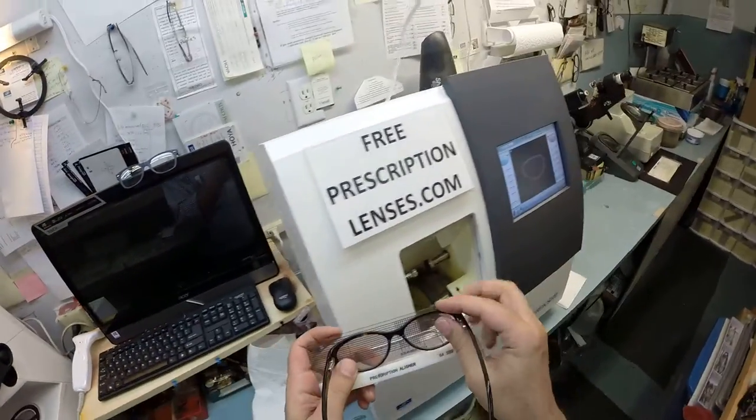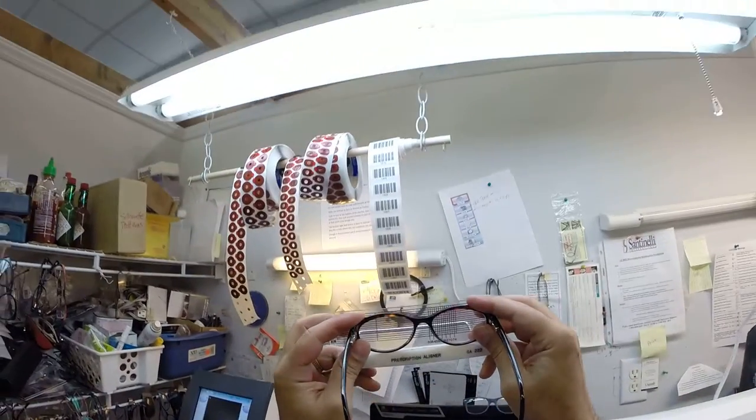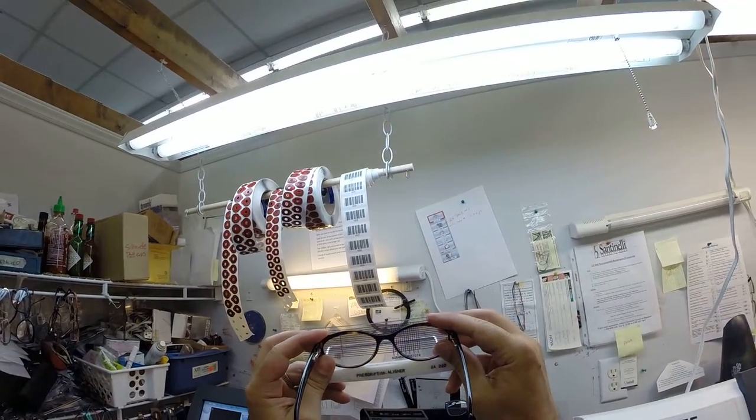I just want to use this graph to make sure everything is sitting in there level. Let me hold that up to a light so I can see. That is perfect.